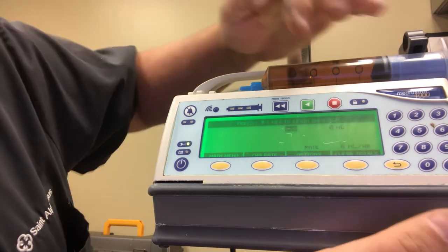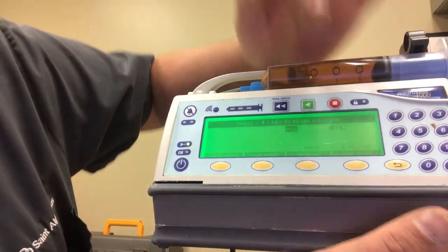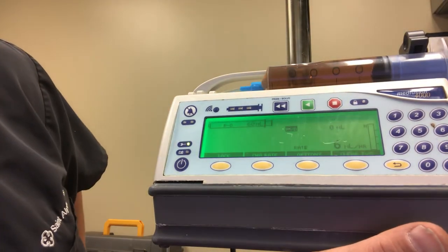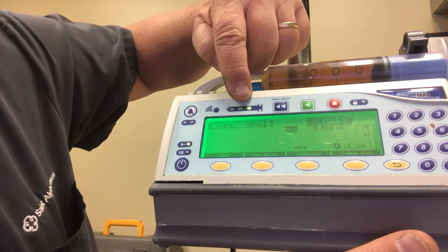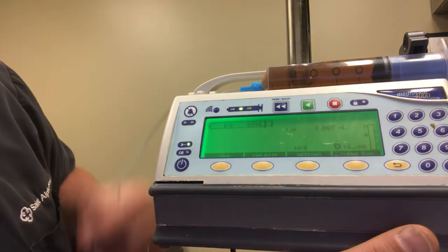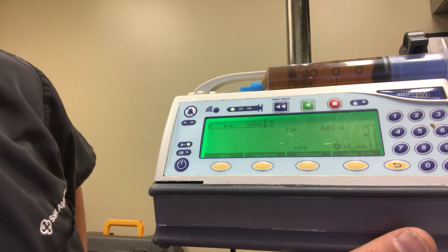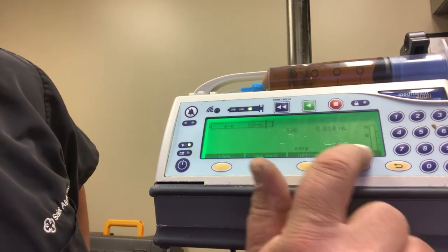Now we're going to press start. You'll see this going, now it's infusing down the line. That's six mils per hour.